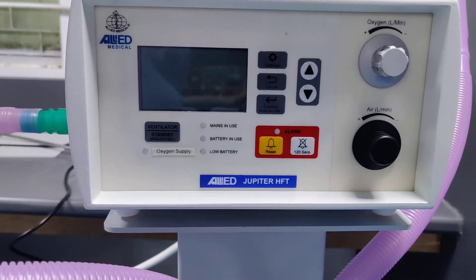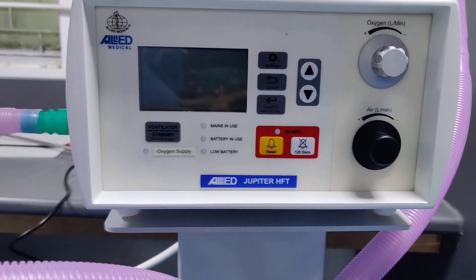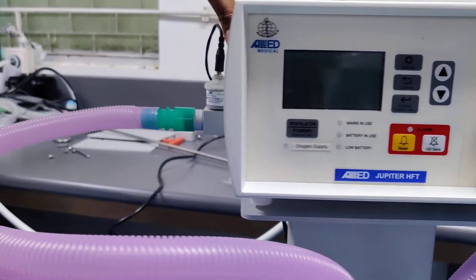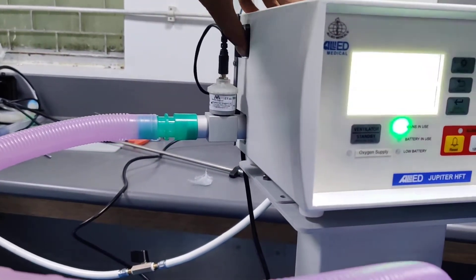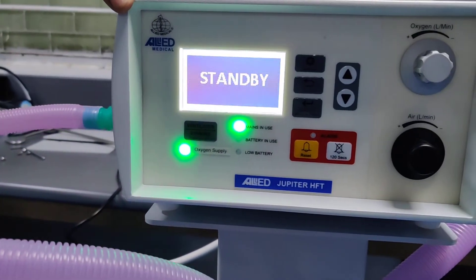For turning this machine on, there is a button on the left side of the machine. Turn it on and you will get a display on the screen.